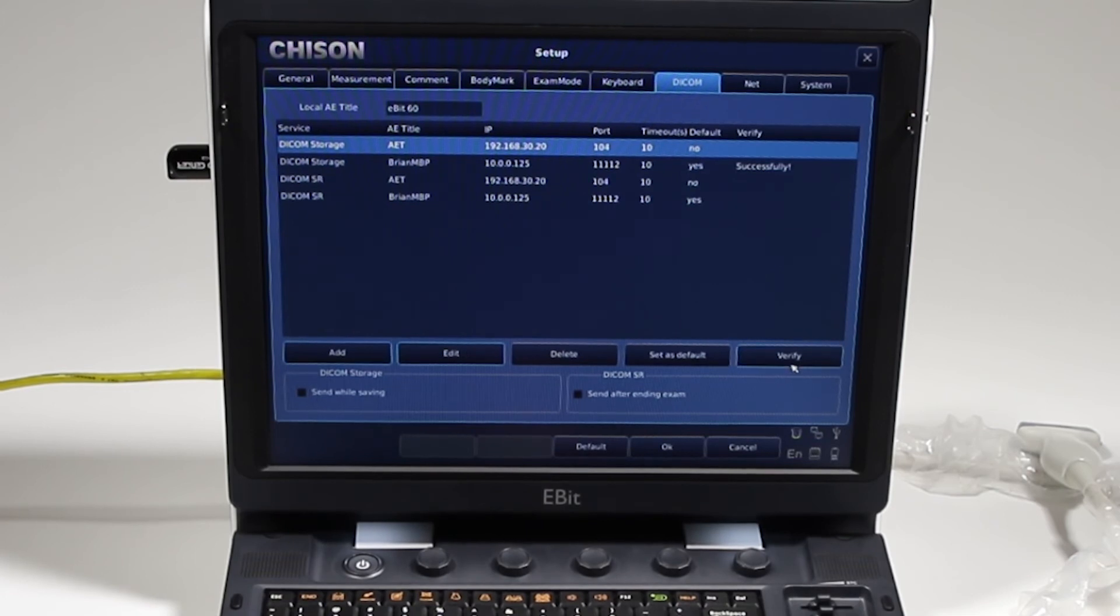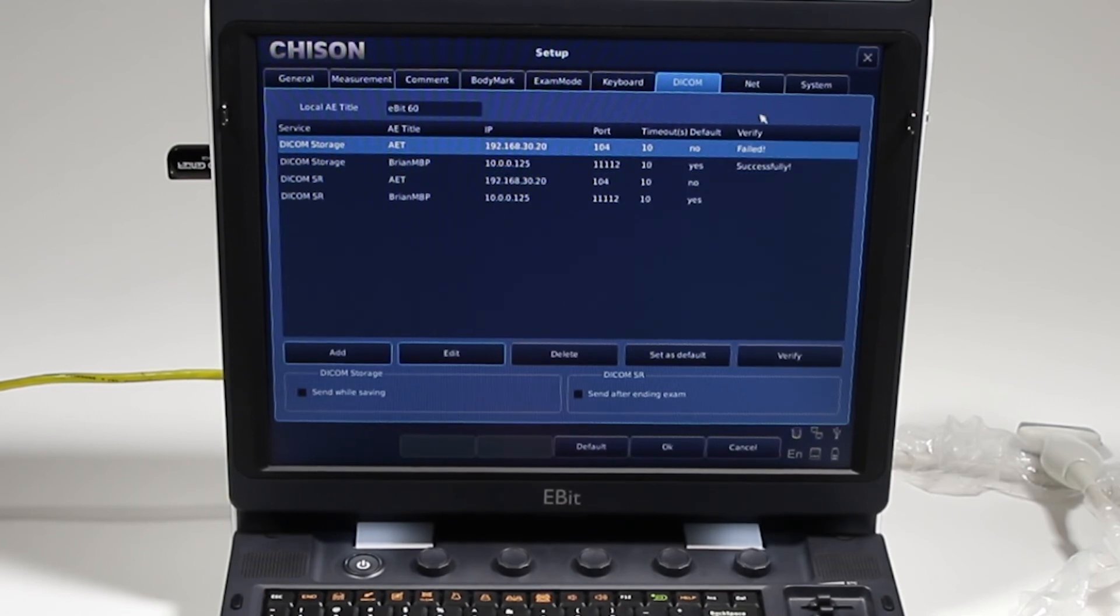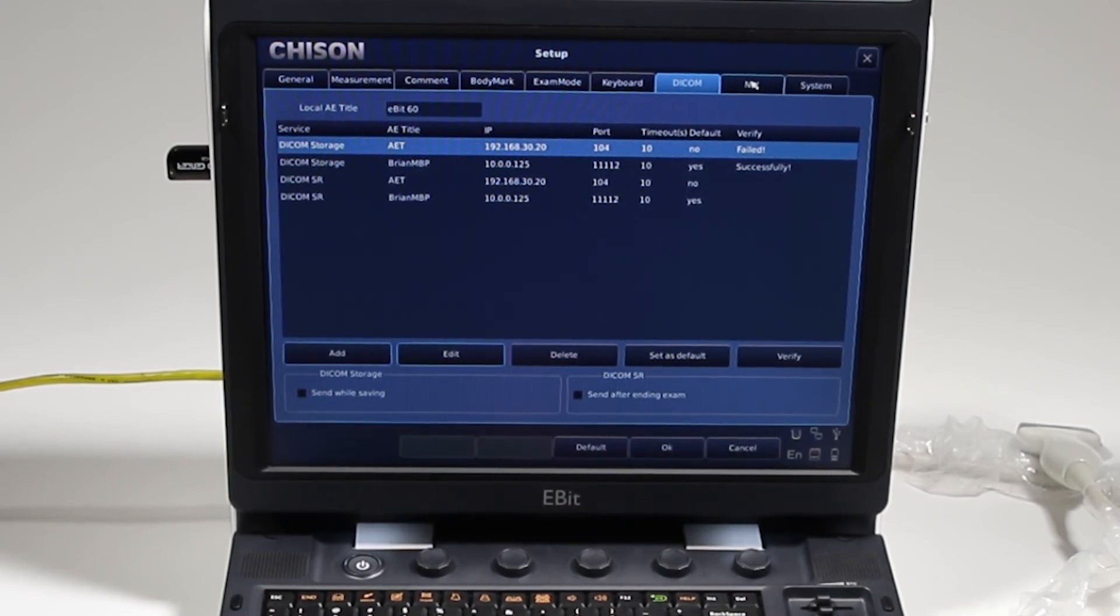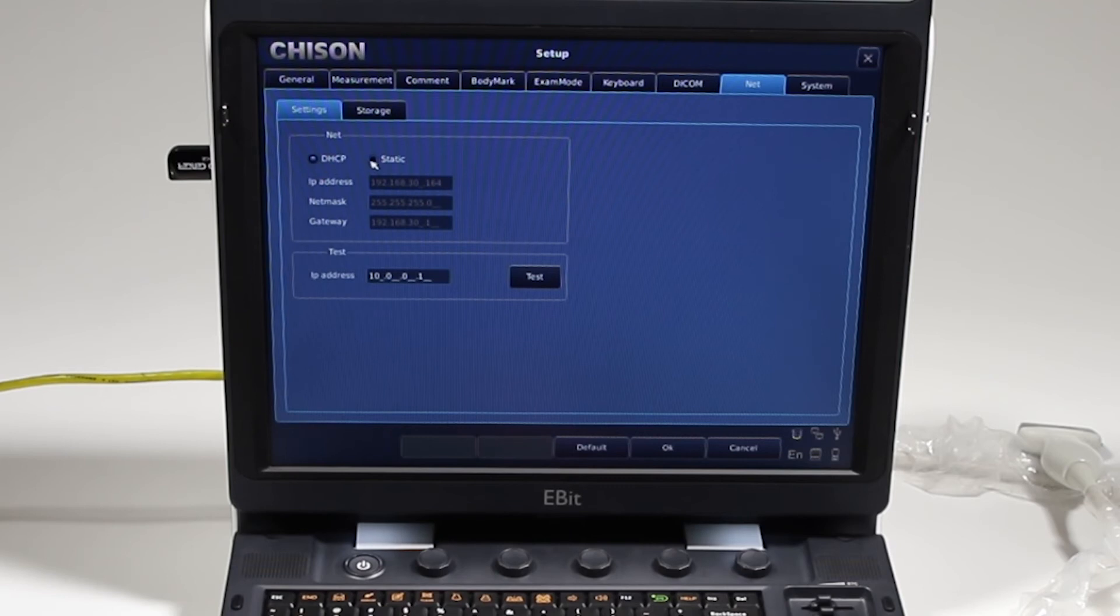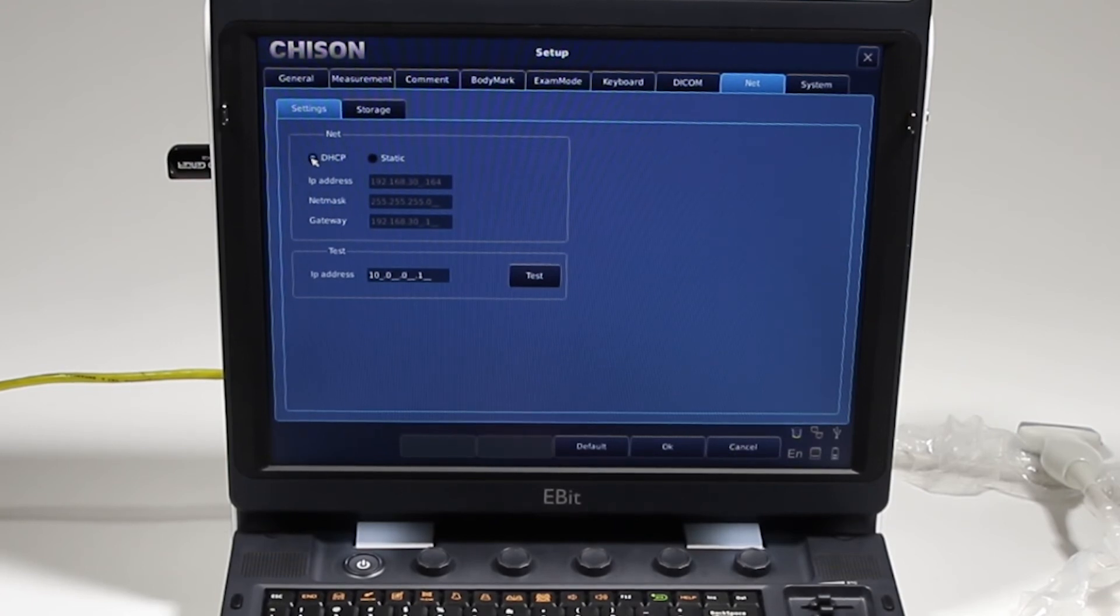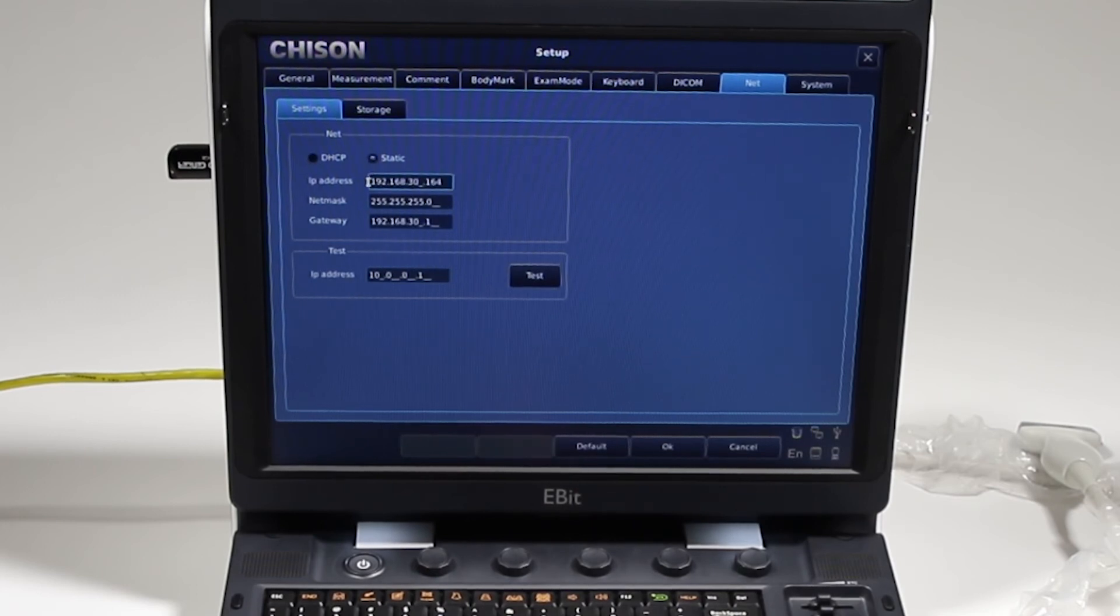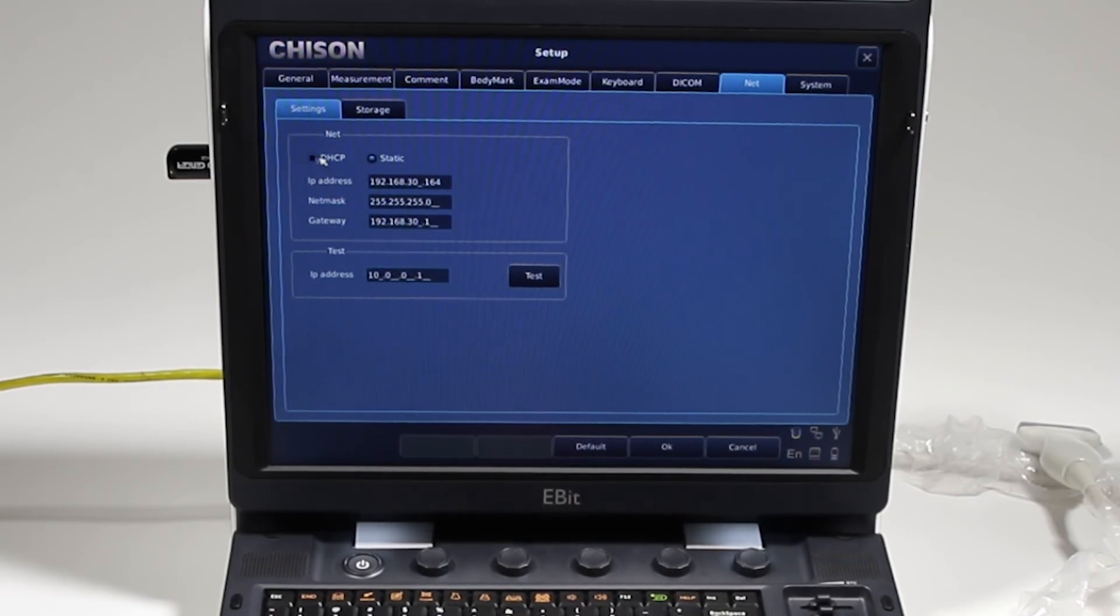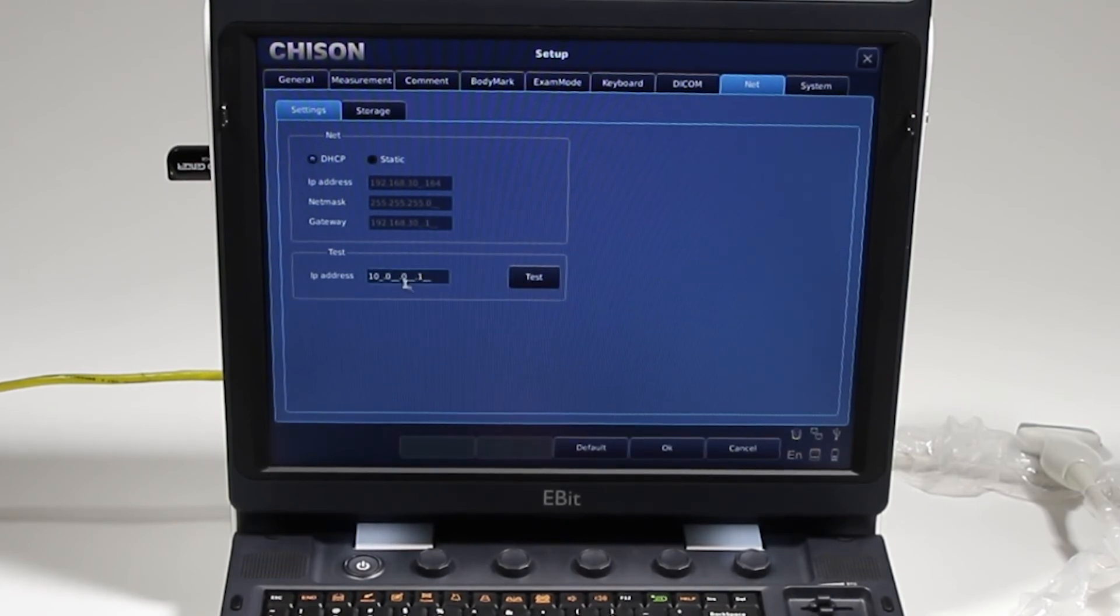So let's go ahead and set up my network. I've got this set up at DHCP, and you may or may not have that option. You have to check with your IT person. This is not something that we can support, and actually none of this DICOM is something that we'll support. This is further than we would typically go because it is pretty simple on this machine. Yeah, they might give you a static IP address and you'll enter all that information here. This test is also called a ping. So if I choose the DHCP, I have an IP address that you can test. It'd be something on the network, and again your IT person would give it to you. If you don't know what it is, you would have to get that information from them. If I hit test, it says testing.